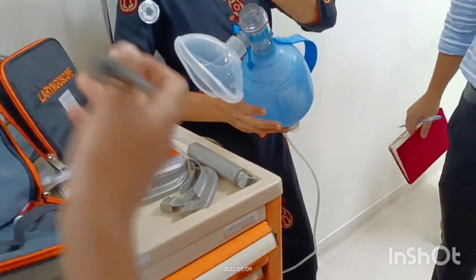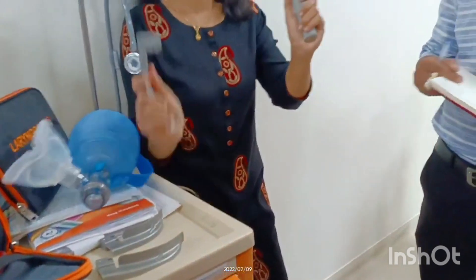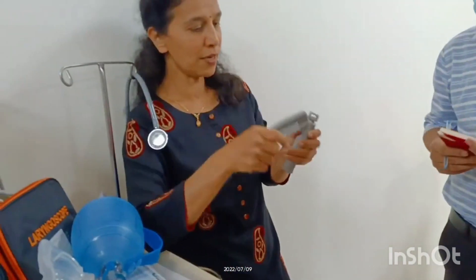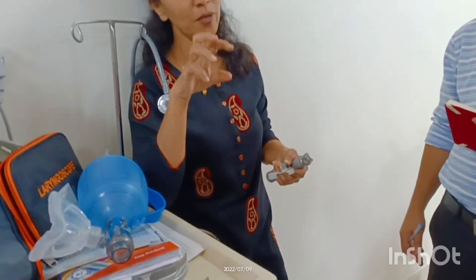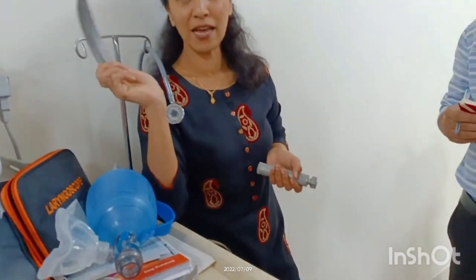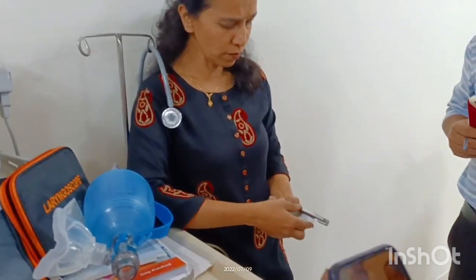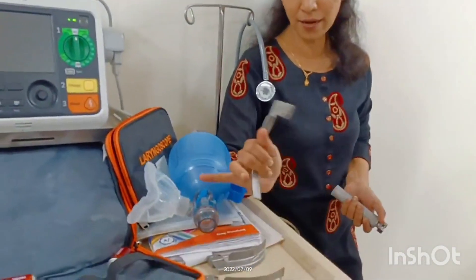The laryngoscope blade comes in different sizes. This part is called a blade. Depending on the patient, we assess and decide which blade to use. In elective intubation we assess beforehand; in crash intubation we would have already assessed the patient and will know which blade to use. There are two sets — adult and pediatric.